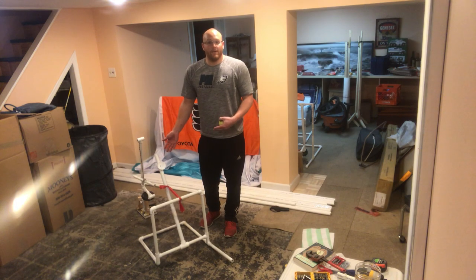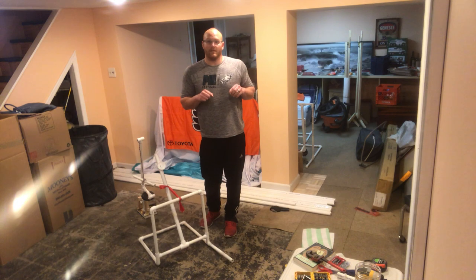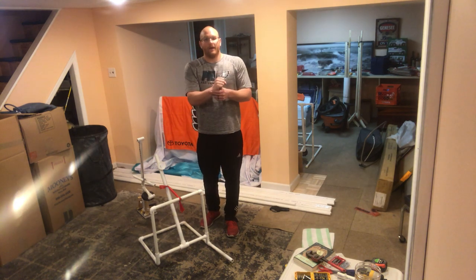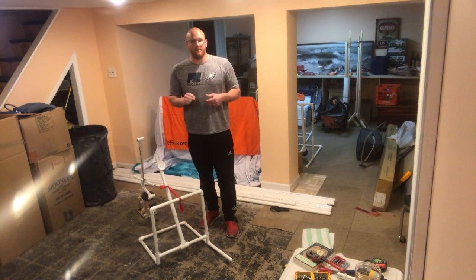For a student, for this type of device, it's great for children that have full functioning of their arms. It's even fine for partial functioning of their arms, or just the use of a hand and mini pulls. If your child has difficulty with grasping, you can always wrap an elastic band around their hand to hold the bar so that they're able to pull.